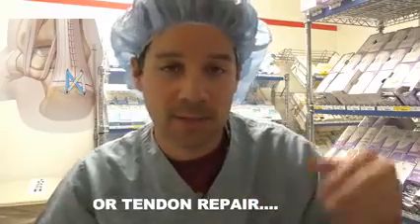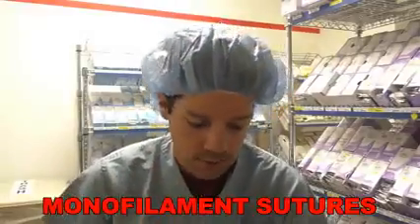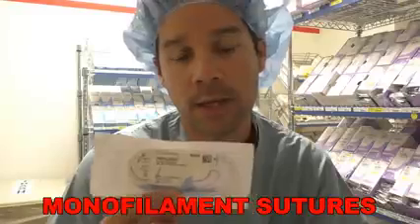You see them a lot of the times when they place anchors, and they'll use that fiber wire. It's a tough suture to break. It's tough. Now we move on to the monofilament suture, the single strand suture. I want to start off with the non-absorbables first, and the first one is going to be Prolene.